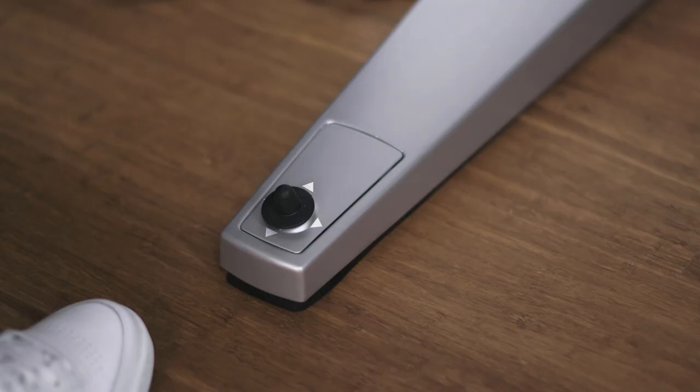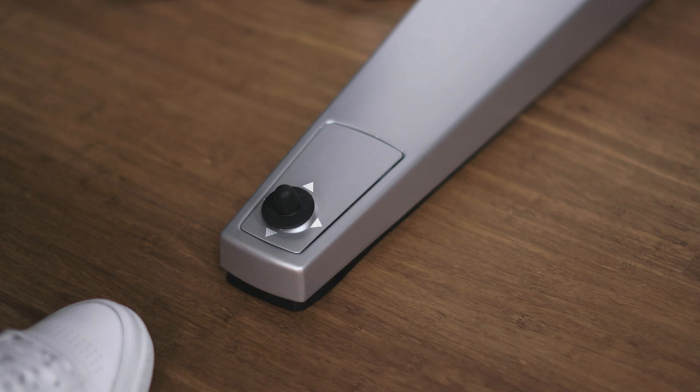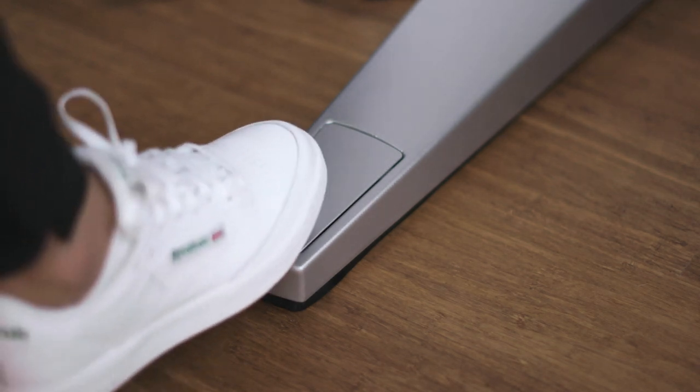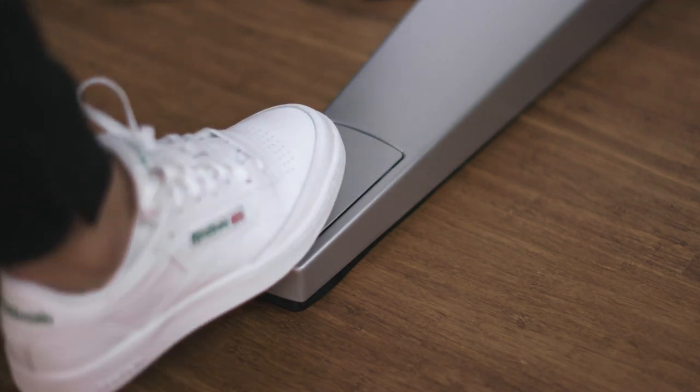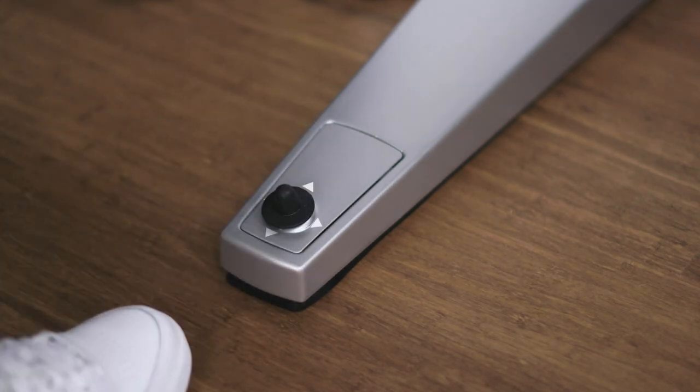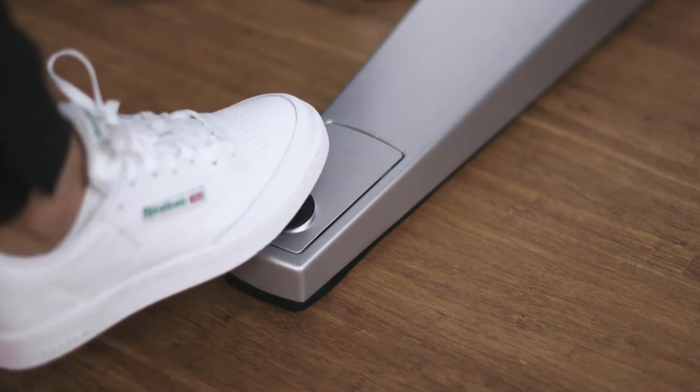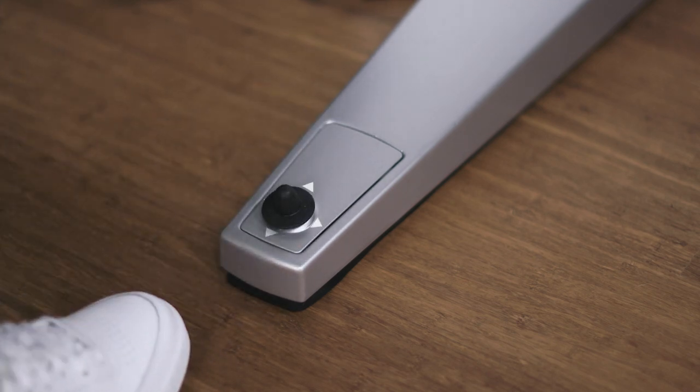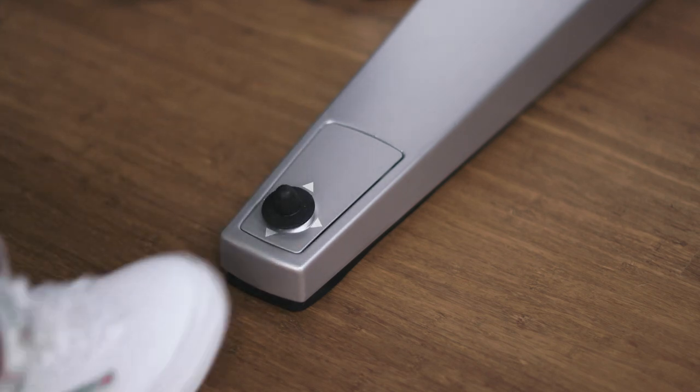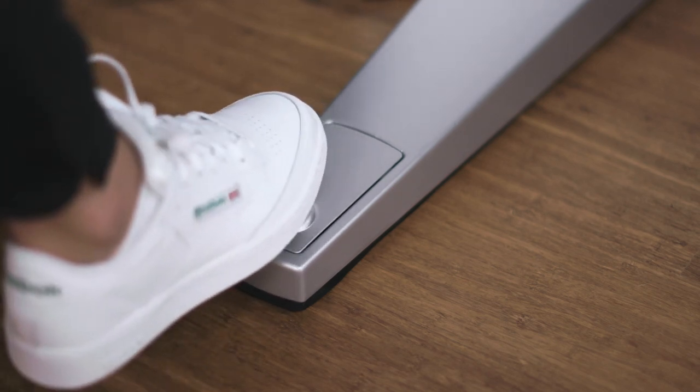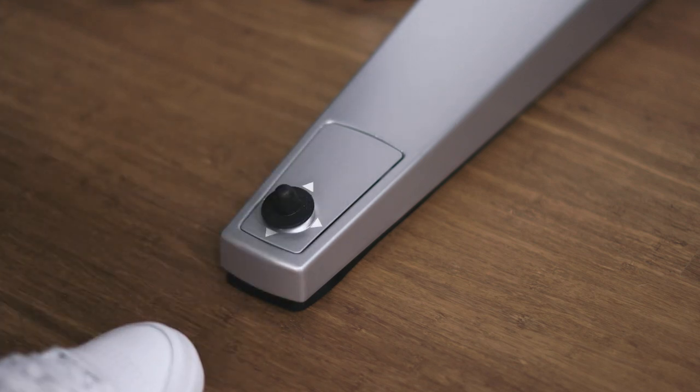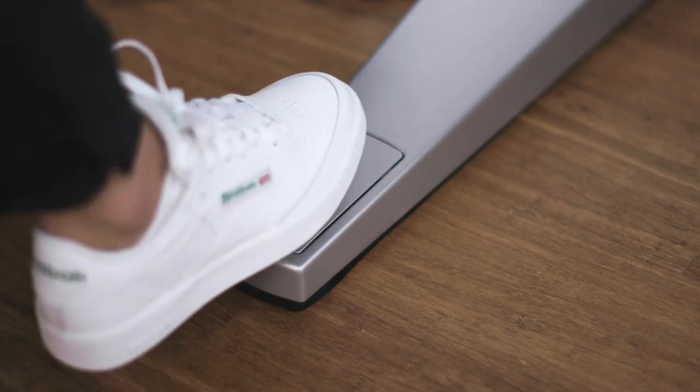The chair-based joystick is used to position the patient's chair. The chair-based joystick can be moved north, east, west, and south.